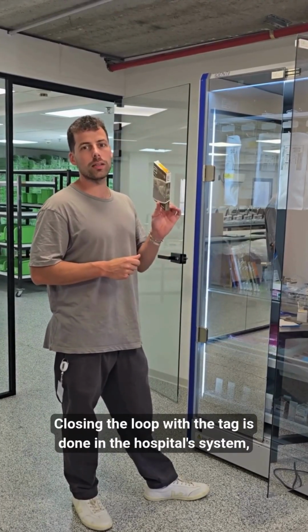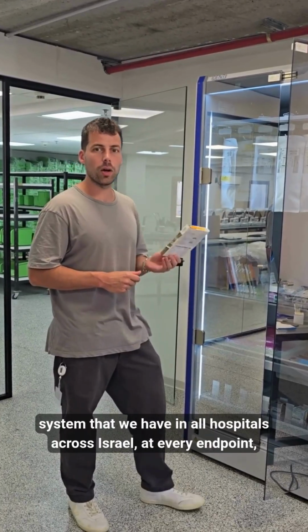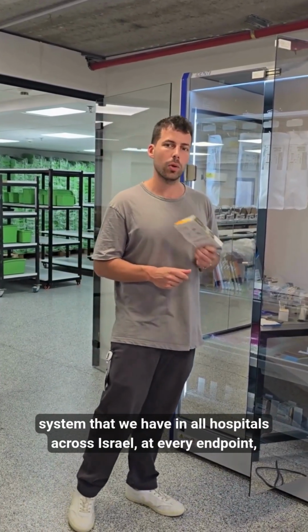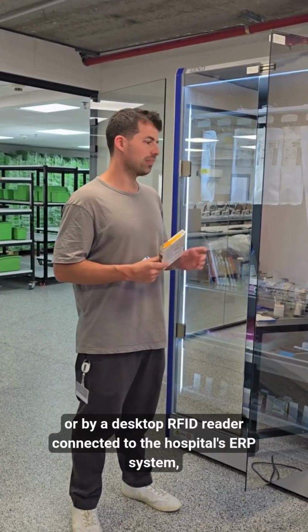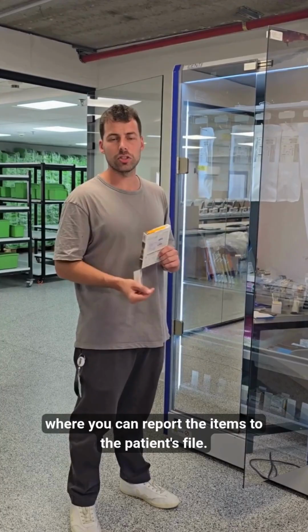Closing the loop with the tag is done in the hospital system, which is carried out either by the Snap and Go system that we have in all hospitals across Israel at every endpoint, or by a desktop RFID reader connected to the hospital's ERP system, where you can report the items to the patient's file.